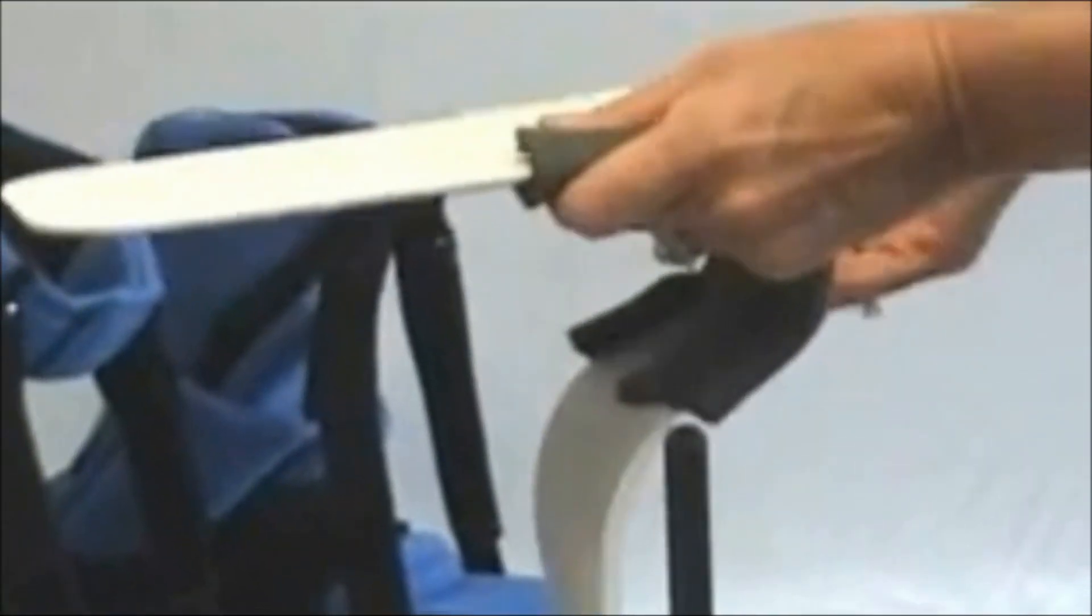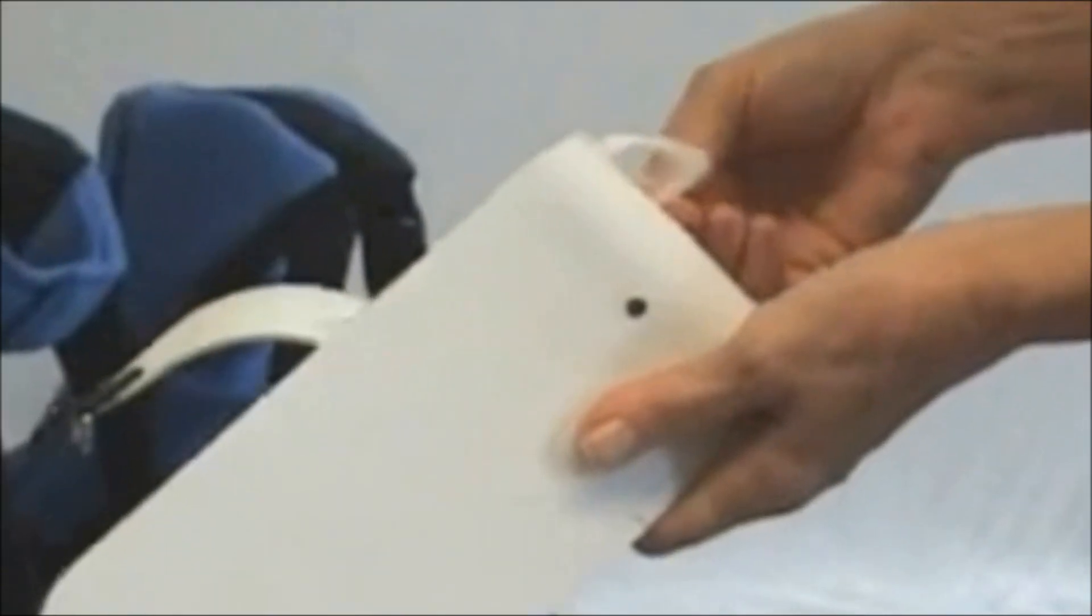You're going to heat the kydex with a heat gun. The older versions have padding along the sides that you need to remove to protect them from the heat source. The newer versions of any of our boots have this redesigned to be sewn into the padding.